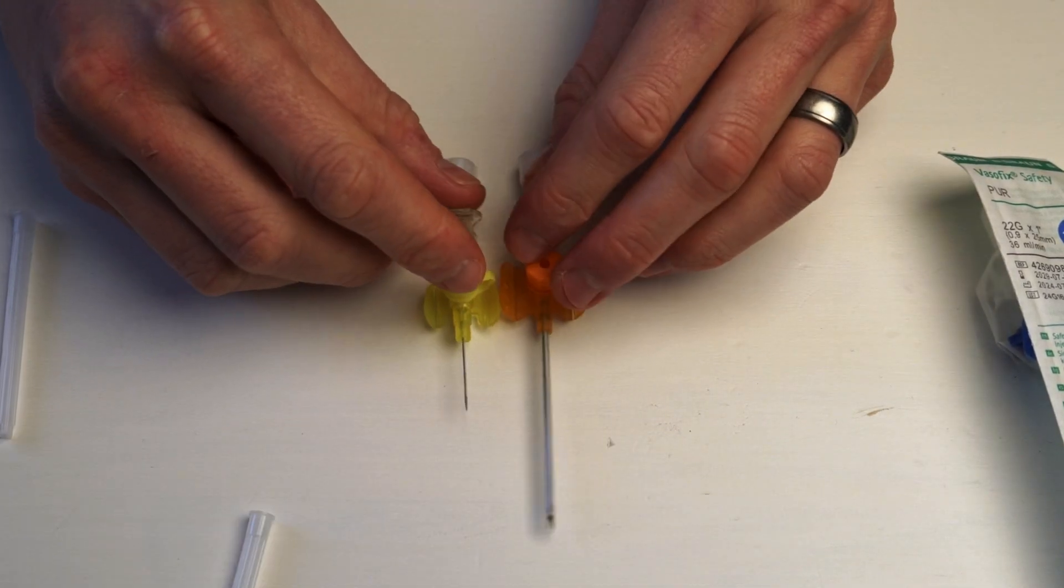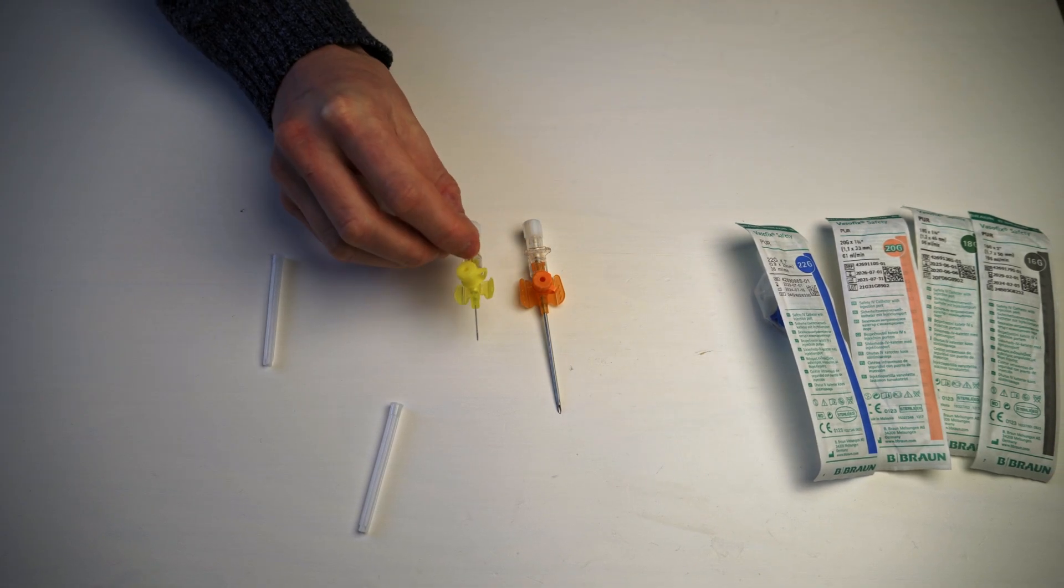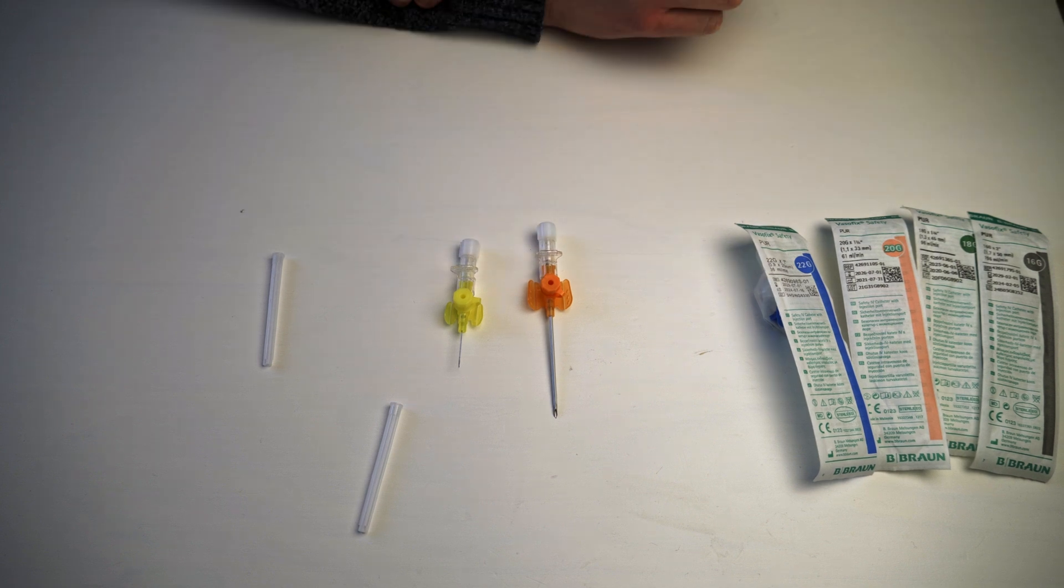Well, that's because there is this protector on it. As you can see, there is a huge difference. As we can see, there's a huge fluid difference. This one can put a liter in 45 minutes. This puts a liter in less than three minutes. Huge difference.